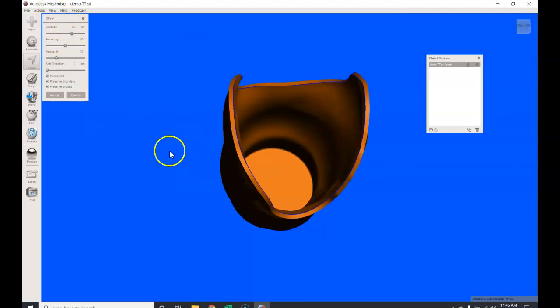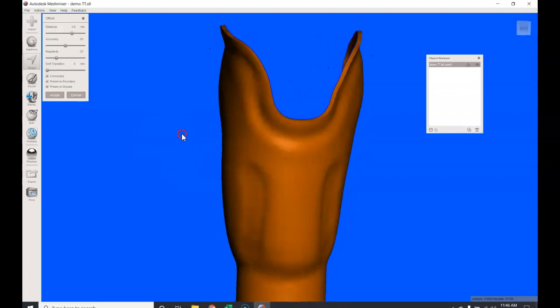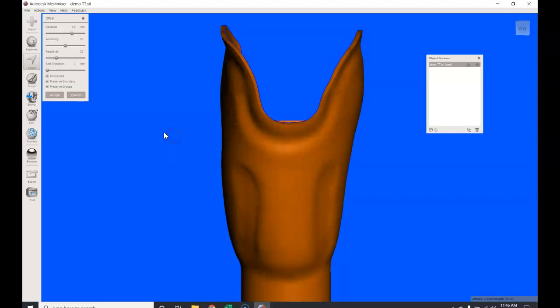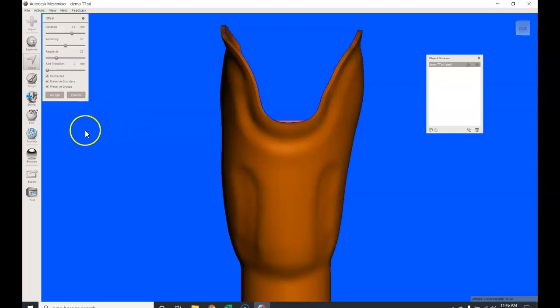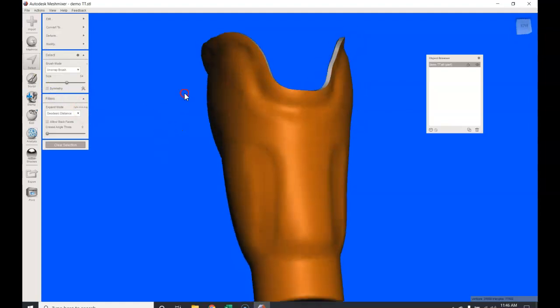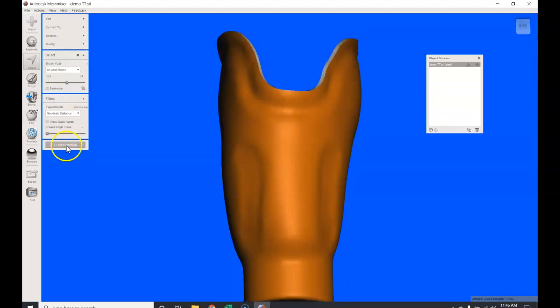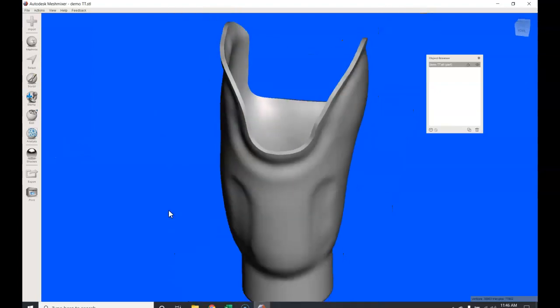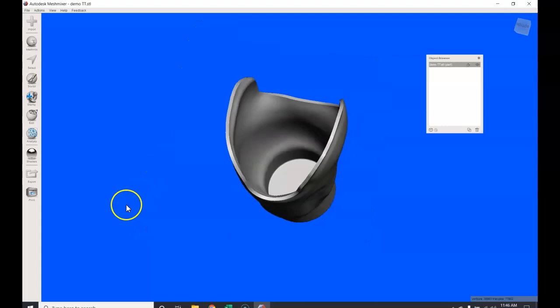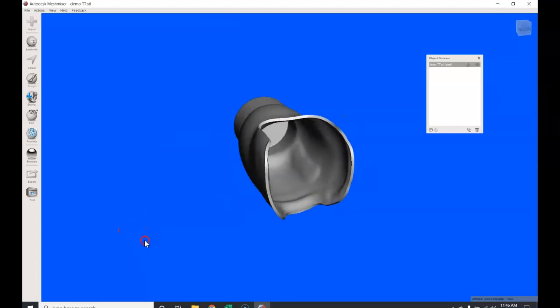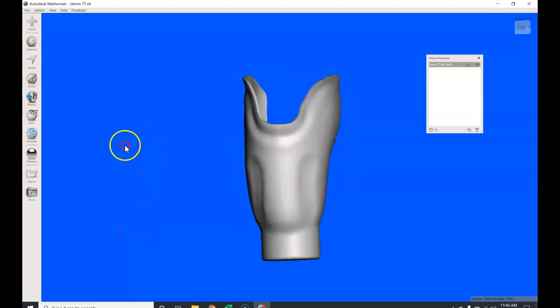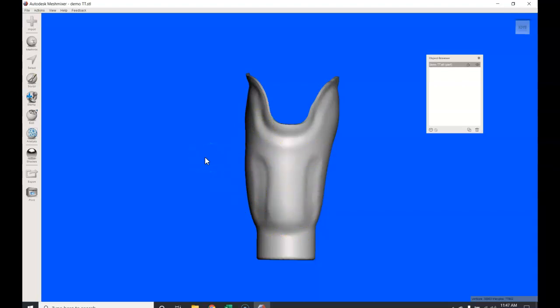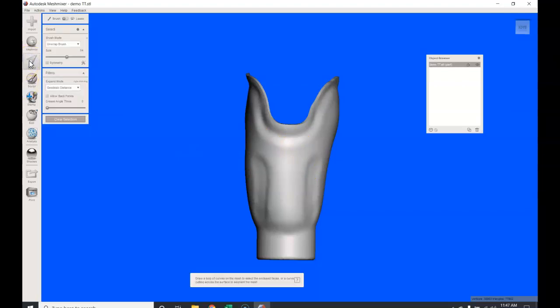I'm going to leave the accuracy alone, I'm going to leave the regularity alone. Soft transition—I think what's important to note is that we want the connected box, we want the preserve boundary box, and we want to preserve groups. I'm not going to really go into detail what those all do, but I could tell you is that is why I have this nice solid wall thickness. You can make this wall thickness as thick as you want or as thick as necessary, but I've come up with this method number one to provide a robust base wall thickness based on my printer head, and also because it also allows for us to have some bit of flexibility in really how thick we want our socket walls. I'm going to hit accept now. So we have this; I'm going to clear the selection. And by clearing it, it just means okay, you could see that nice 3.6 millimeter wall thickness, and we preserved our internal socket shape.